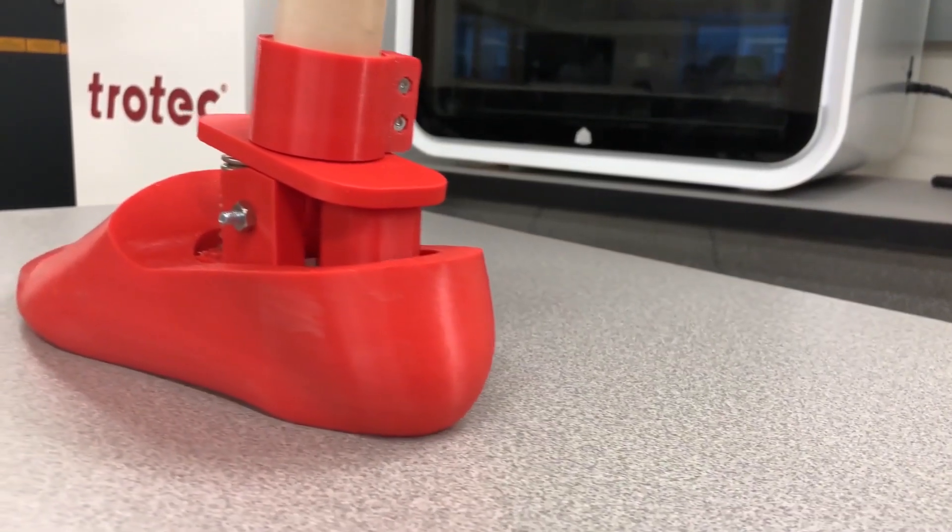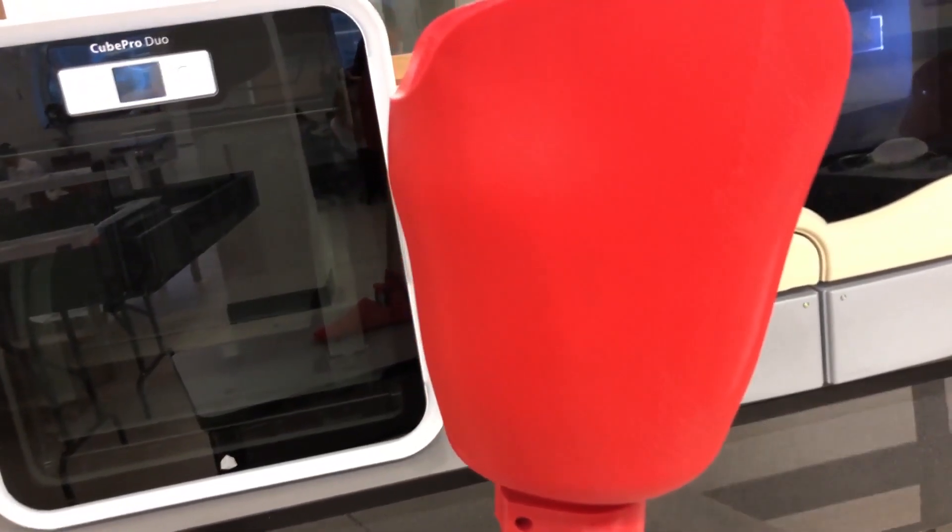We plan to add rubber and foam padding to areas of the leg such as the foot and the socket to increase the comfort of the prosthetic.